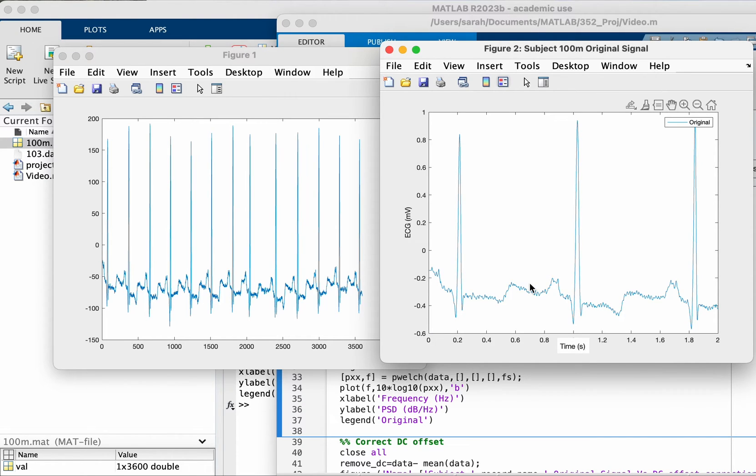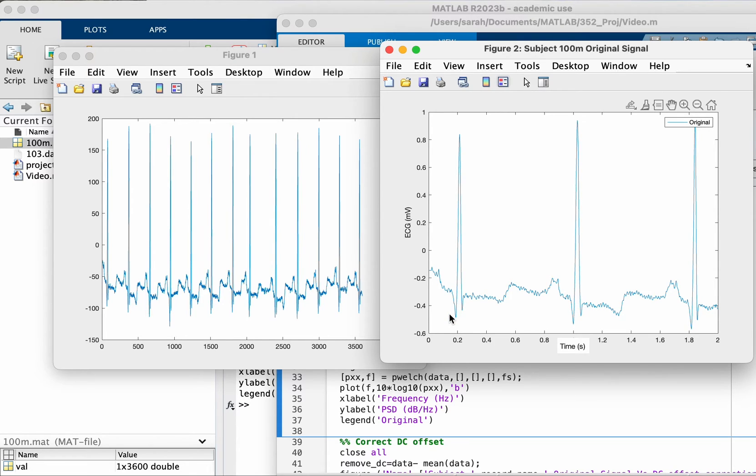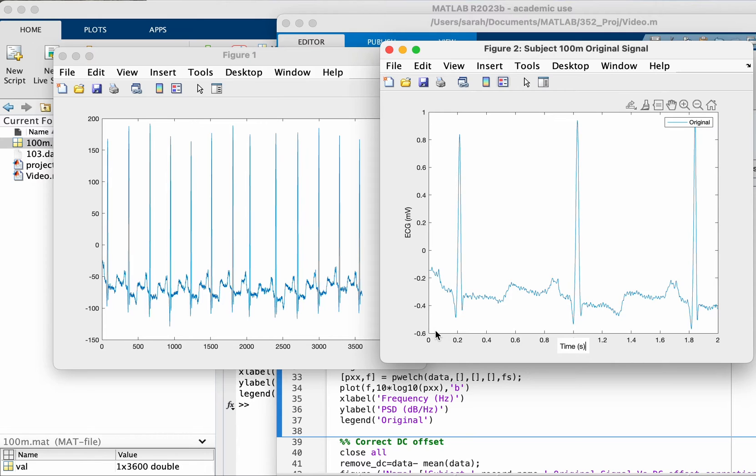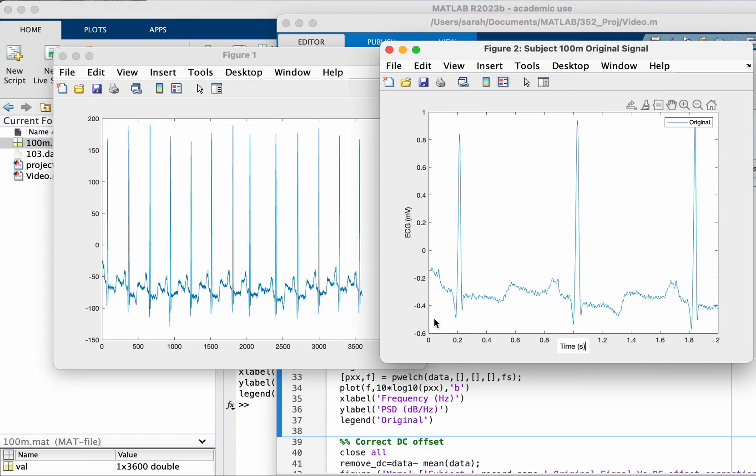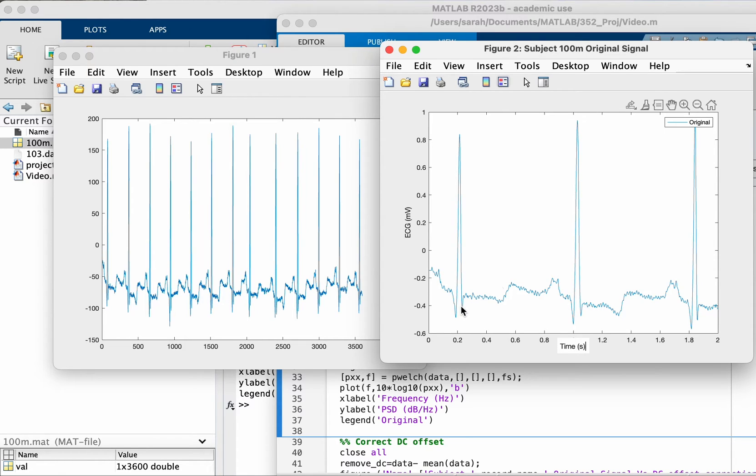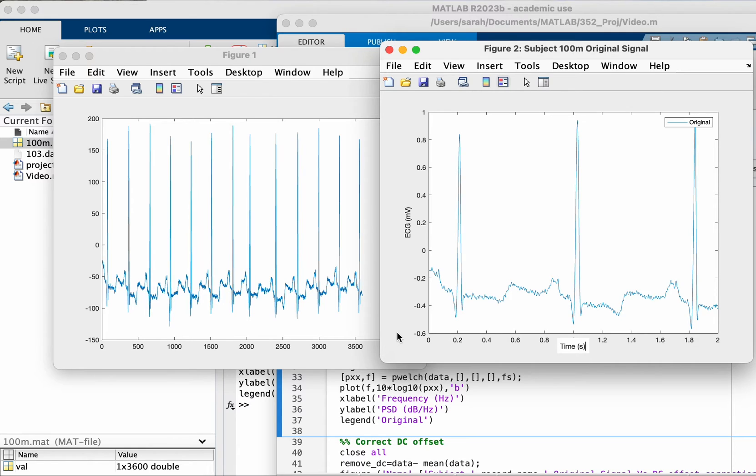For that I would need to know what is my sampling frequency. I can find this information whenever I download data from a database. It will tell you information about how the data was recorded.